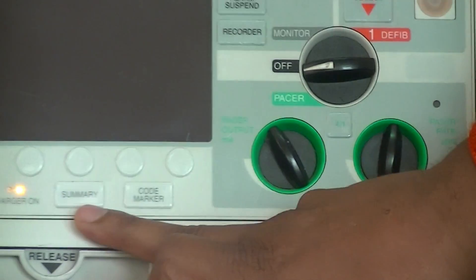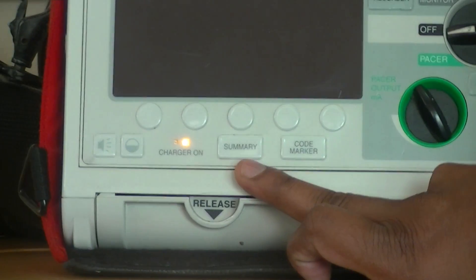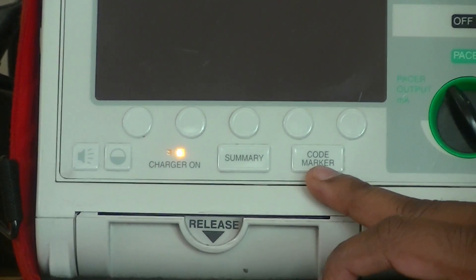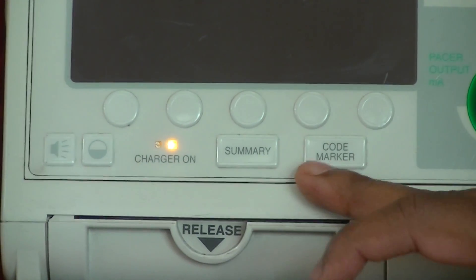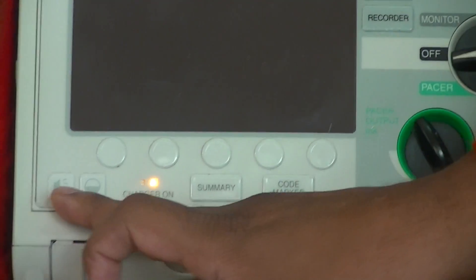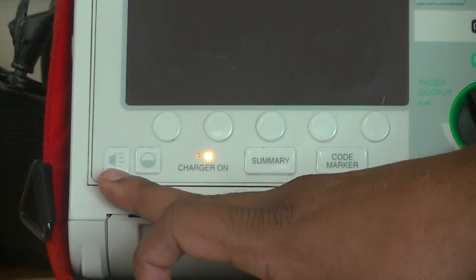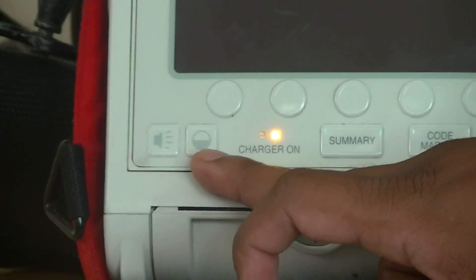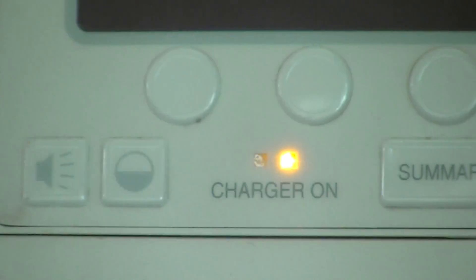At the bottom, you can see 2 buttons which indicate a summary and a code marker. When you want to select the code marker, you can use it — I will explain that later. And these 2 buttons allow you to increase or decrease the volume and the screen brightness.